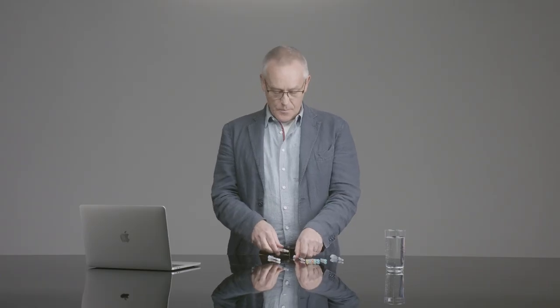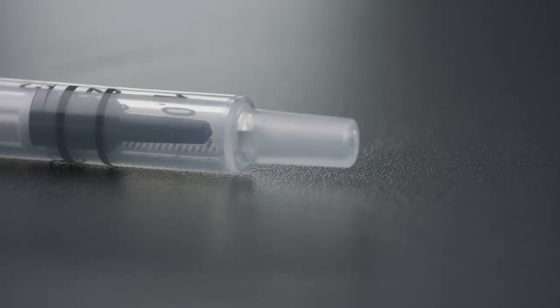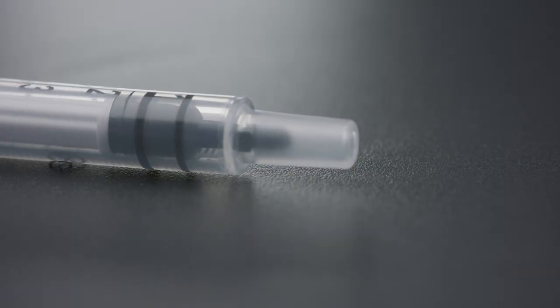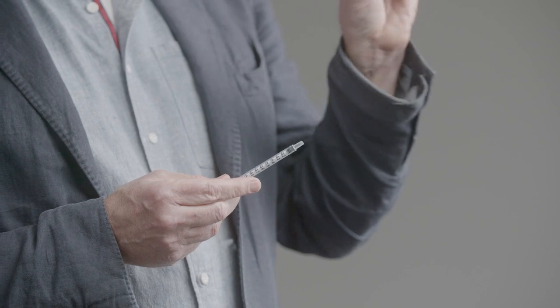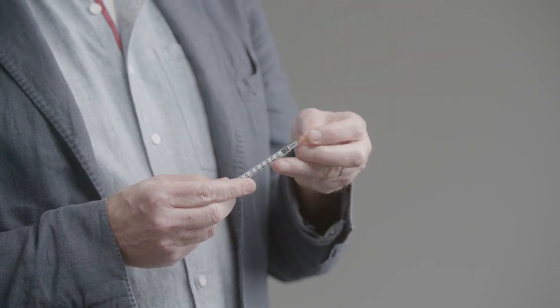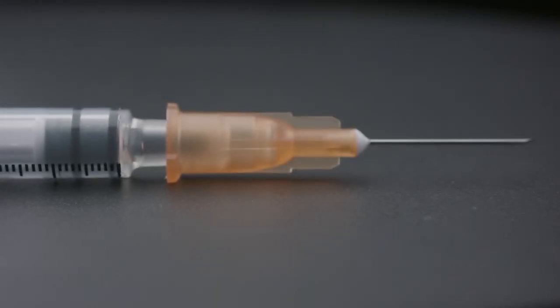The other partial solution is a reduced dead space syringe. These syringes don't reduce the dead space as much as you might think, because although the spike on the end of the plunger fills the tip of the syringe, it isn't able to go into the hub of the high dead space needle that fits onto it. The dead space in a reduced dead space syringe and needle combination is about 50 microlitres.